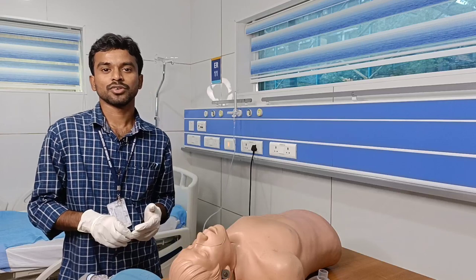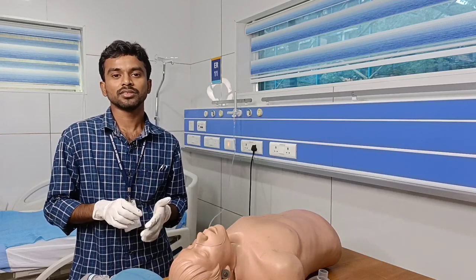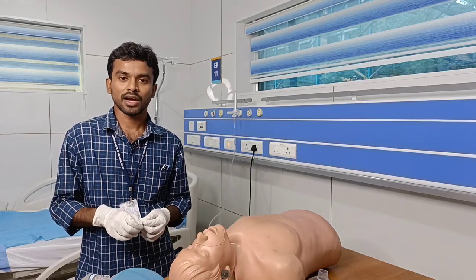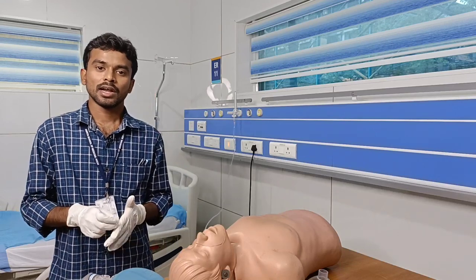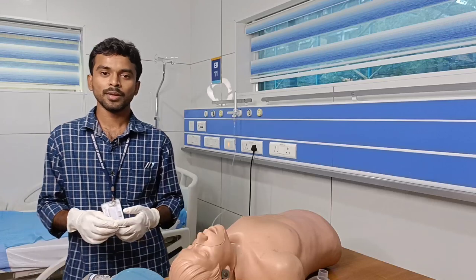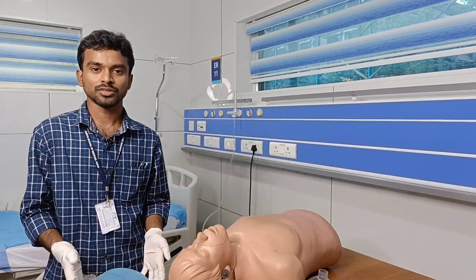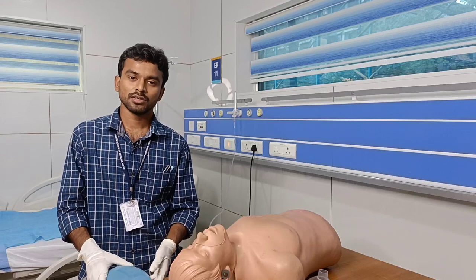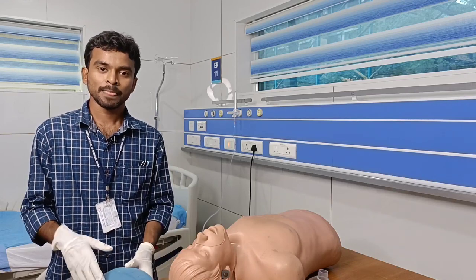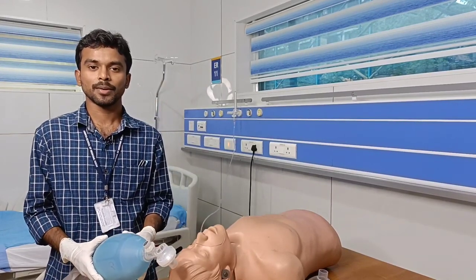The indications of bag mask ventilation include patients in apnea, cardiac arrest, and respiratory failure — that is, failure of either oxygenation or ventilation. In the pediatric age group, if the heart rate is less than 100, we will ventilate the patient. Other indications include failed intubation, and as pre-oxygenation before intubation — specifically for denitrogenation and to provide oxygenation to the patient.